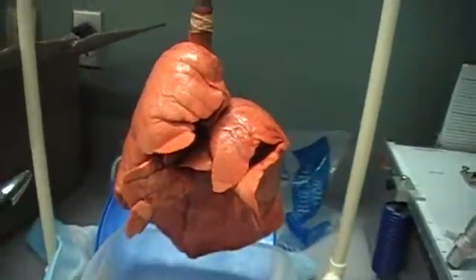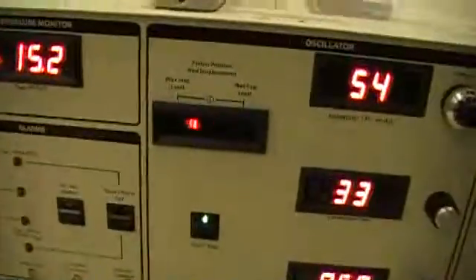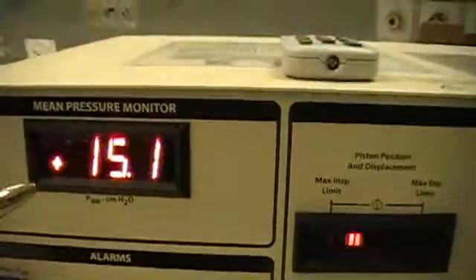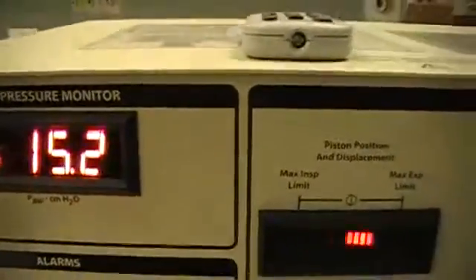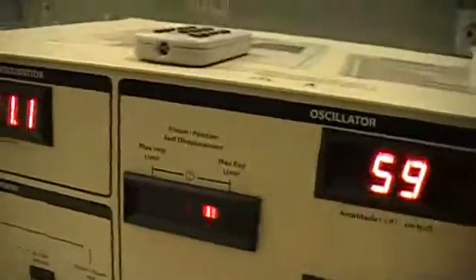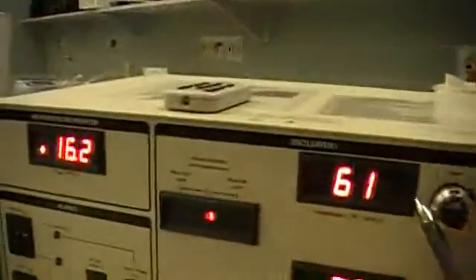Our test lung is actually our pig lungs. The basic circuit we have here — I've got an endotracheal tube to simulate an intubated patient, and we've got our active humidity circuit in here as well. The mean airway pressure is one of the critical elements for oxygenation, as the ventilator is oscillating around this mean airway pressure. I can adjust the bias flow and mean airway pressure with the controls here.